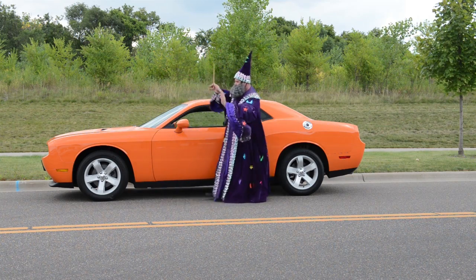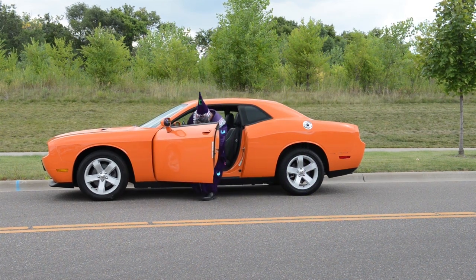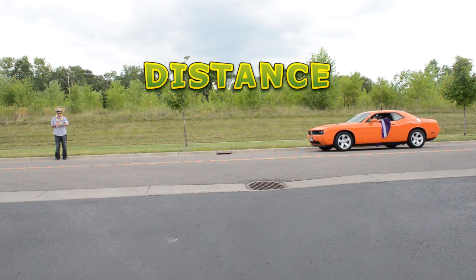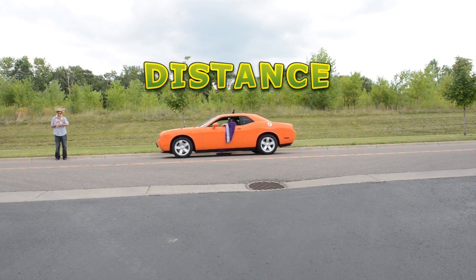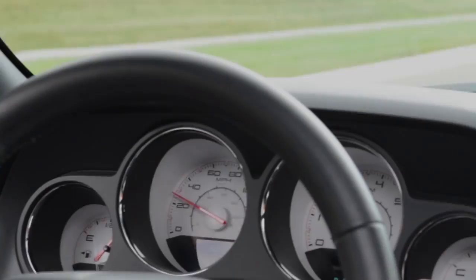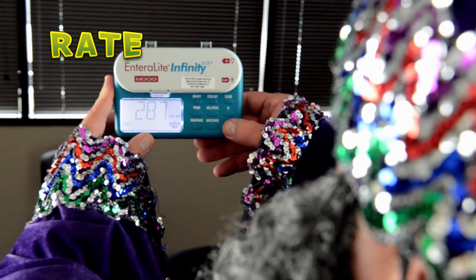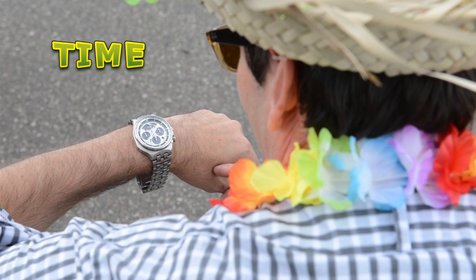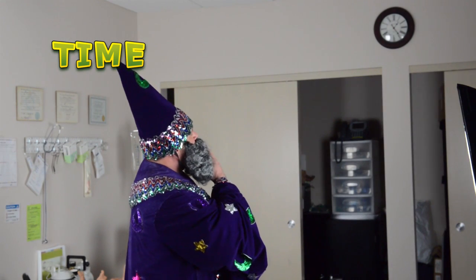A way to remember these three key numbers — dose, time, and rate — is to think about driving a car. The distance a car drives is like the dose on a food pump. The speed the car goes at is like the rate on a food pump. The amount of time the car ride takes to get to your location is like the amount of time the food pump takes to deliver the food.